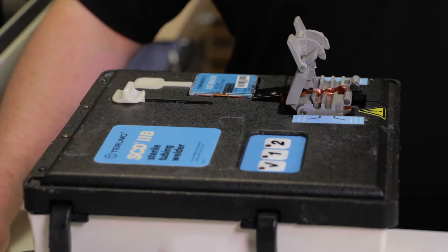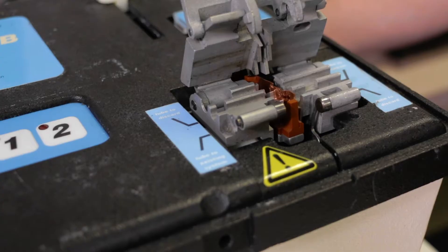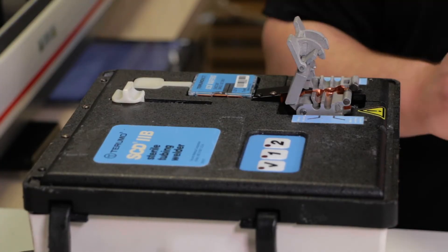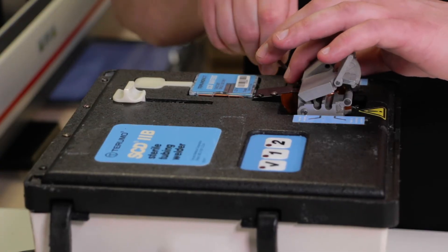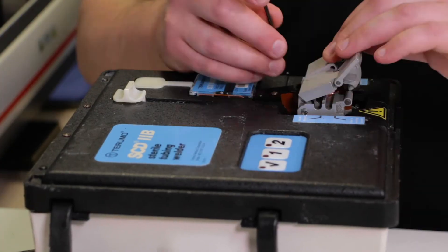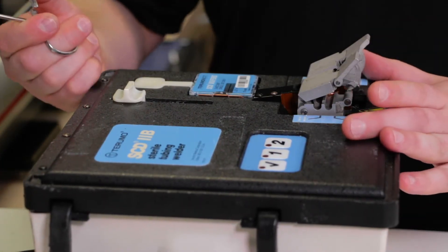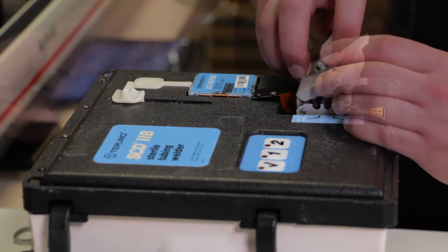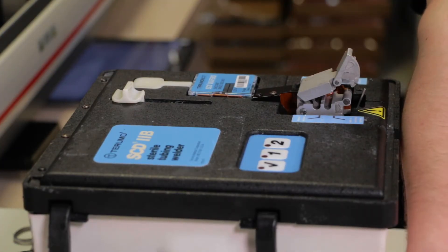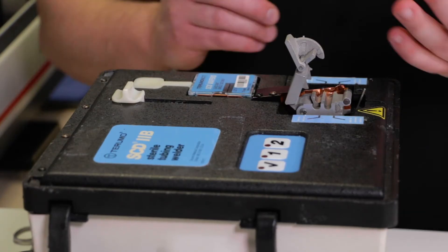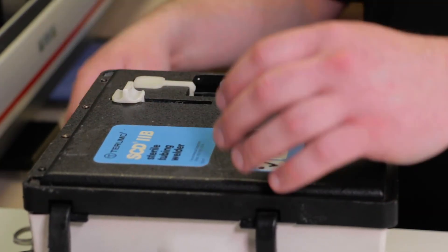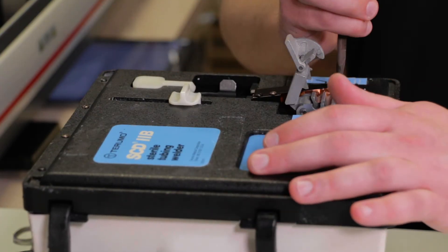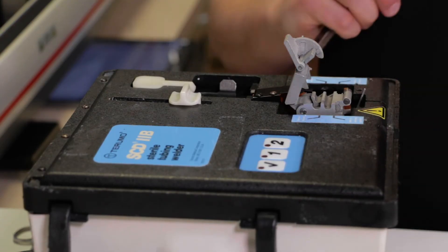Occasionally, the wrong type of tubing or some other accident can occur and result in a jammed wafer blade. To remove a jammed wafer blade, the first thing you'll need to do is remove the frame-mounted tube carrier. This can be done with a 7/64 Allen key. Similar to the realignment, we'll first loosen and then remove entirely the fixing screws. To make sure you get the entire screw, washer and lock washer assembly, hemostats or pliers are recommended. Next, take a pair of pliers and carefully remove the wafer by first leaving an empty wafer pack and doing a partial load just to remove a little bit of tension on the pin. Grip the wafer in the front, pull forward and up to remove your mangled wafer.